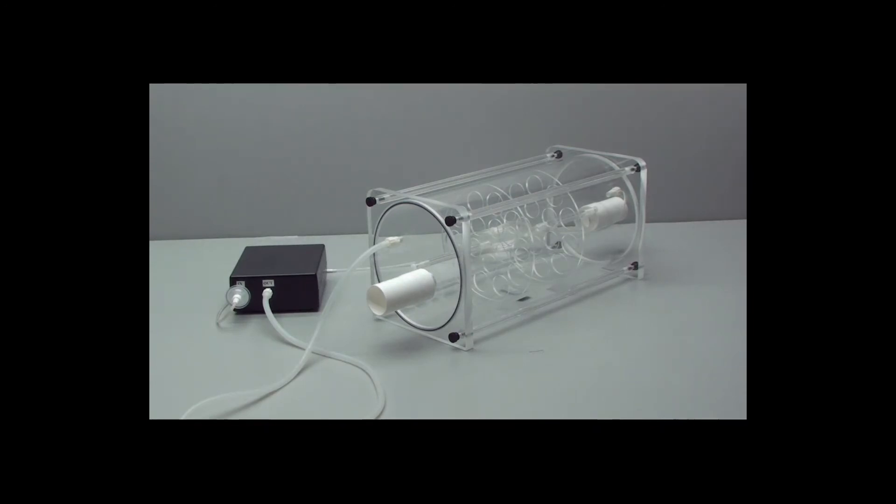You are now ready to calibrate the flow head. Please see the Technical Note Metabolic Cart Setup Checklist for the full written documentation.